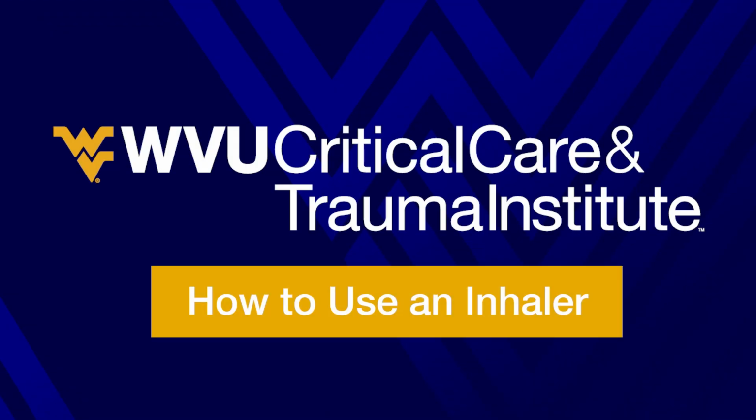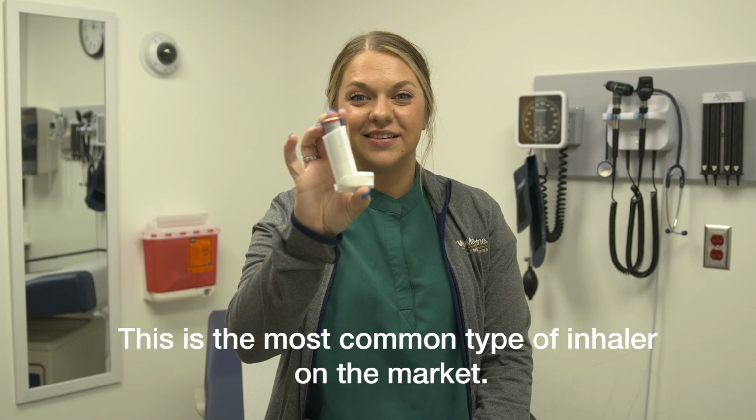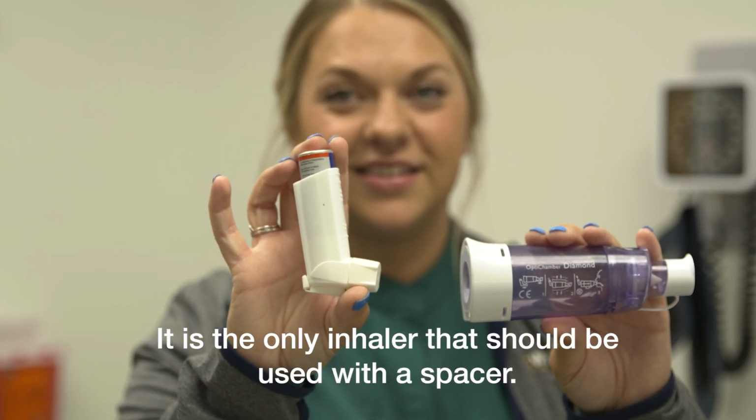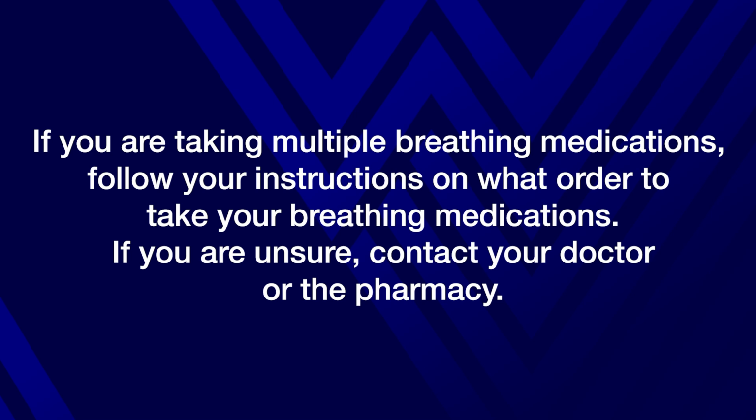Here are the instructions on how to properly use an inhaler. This is the most common type of inhaler on the market. It is the only inhaler that should be used with a spacer. If you're taking multiple breathing medications, follow your instructions on what order to take your breathing medications. If you are unsure, contact your doctor or the pharmacy.